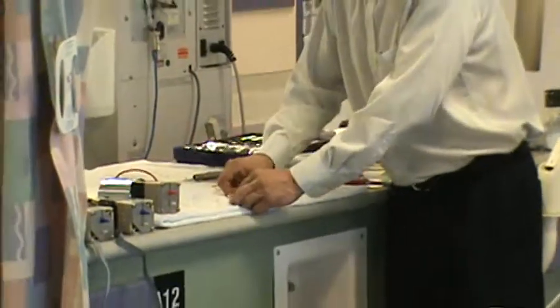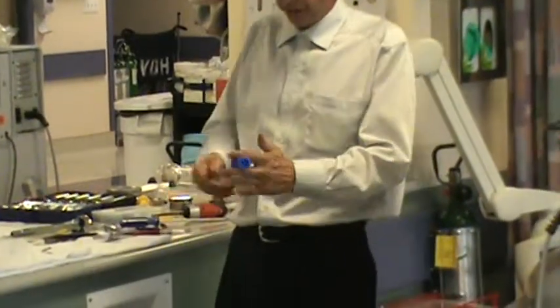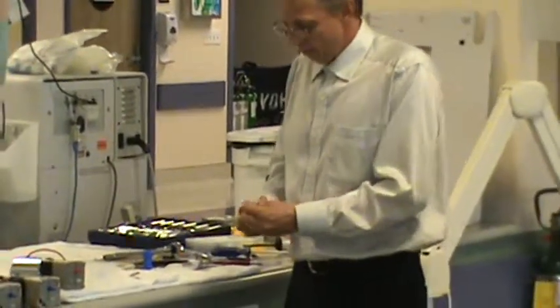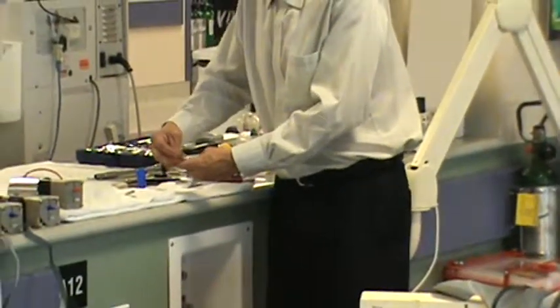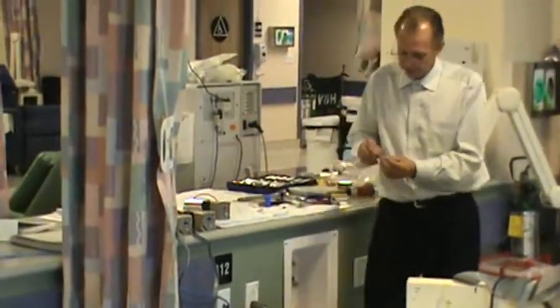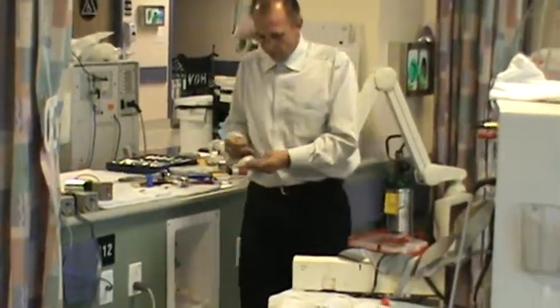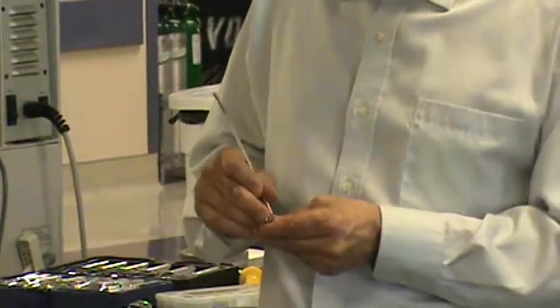The bicarb is always much nicer and cleaner, and I've never had to replace it. Again, I'm only going to replace the required parts here. I'm going to remove the two o-rings. Notice that this o-ring is very loose right now. Locking ring in the garbage. Both o-rings — look at how loose that o-ring is.